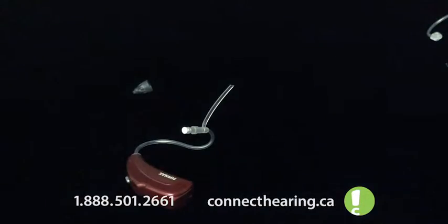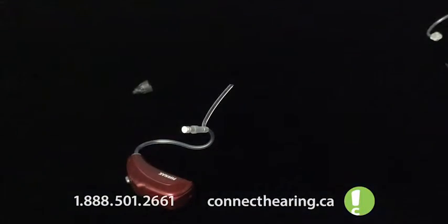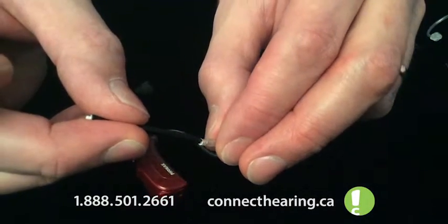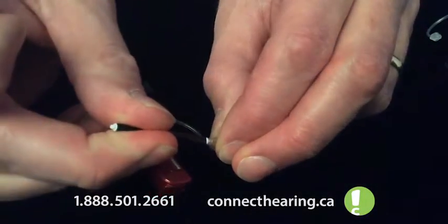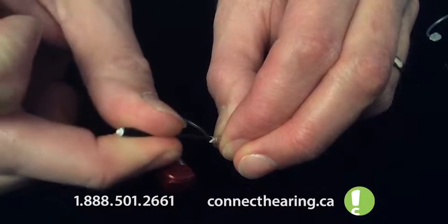Now for changing that, we have our package of Cerostop wax guards. I'm going to take a single one on the side with a stinger barb and I'm going to go straight in and pull straight out. Sometimes they stick, and this one's sticking pretty good.